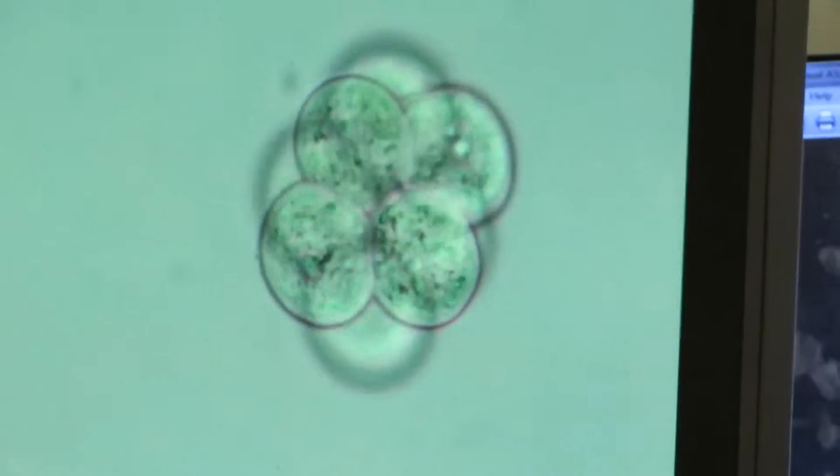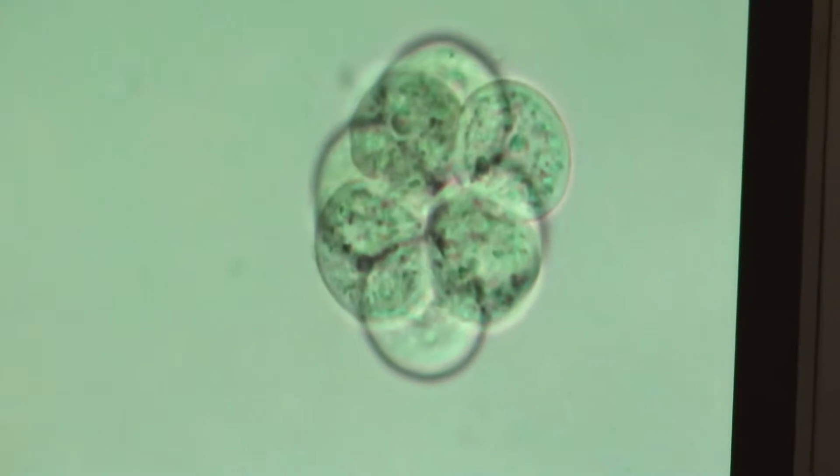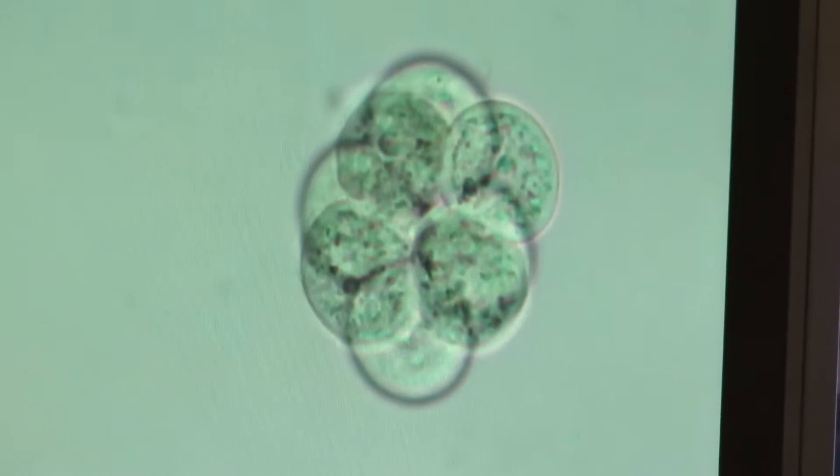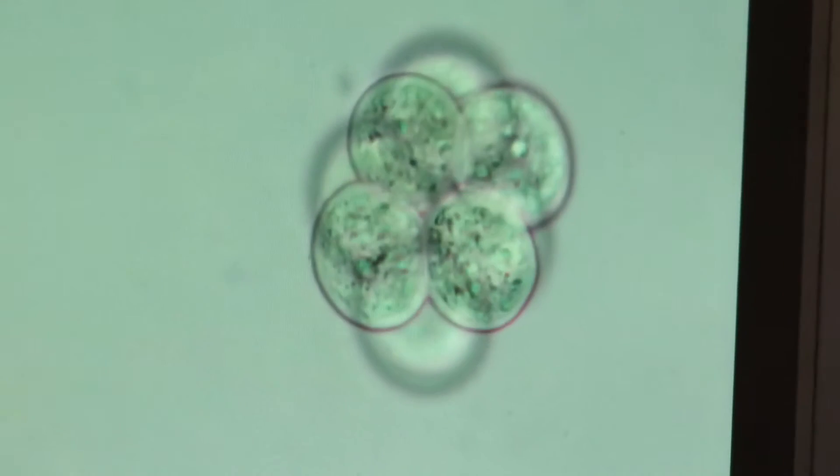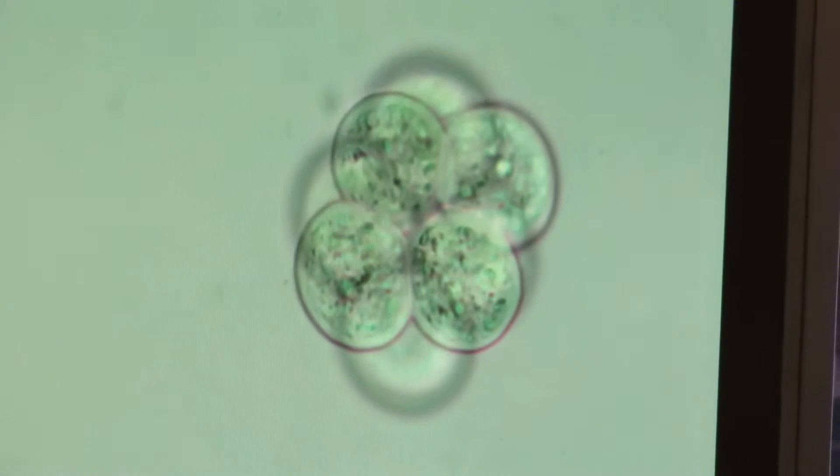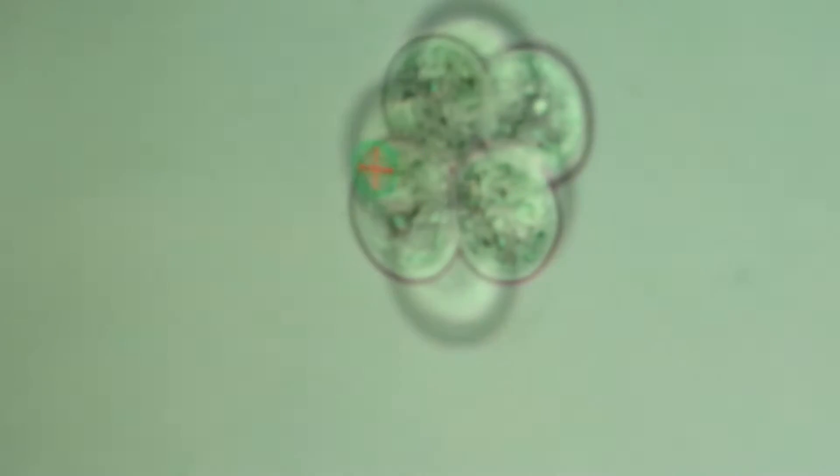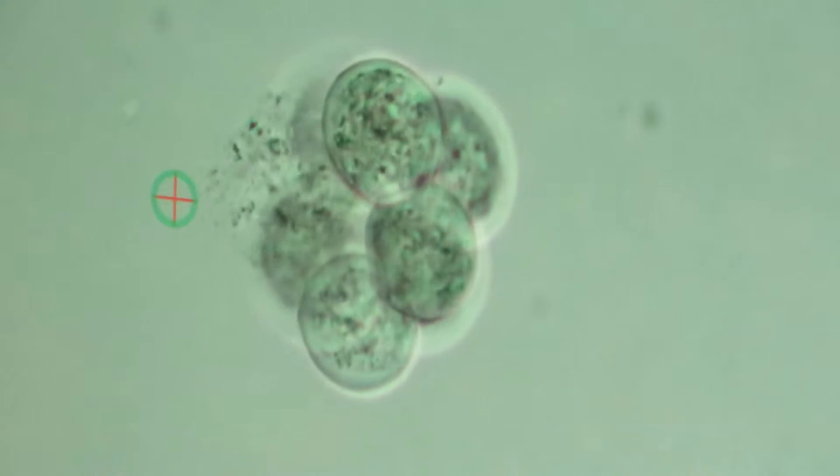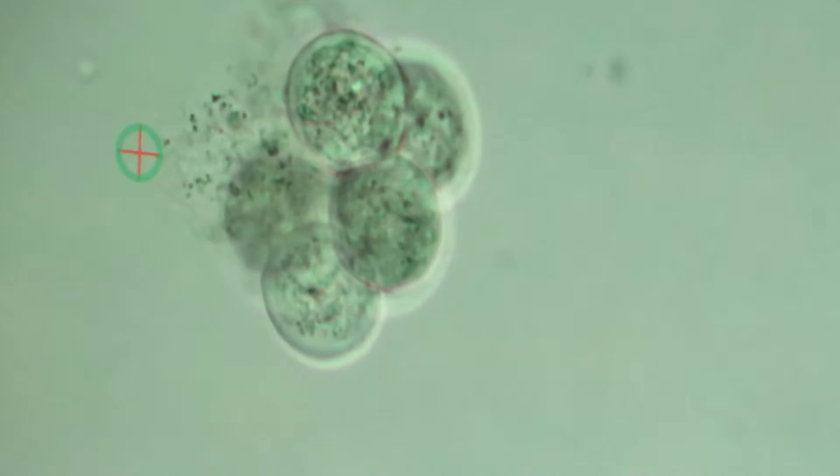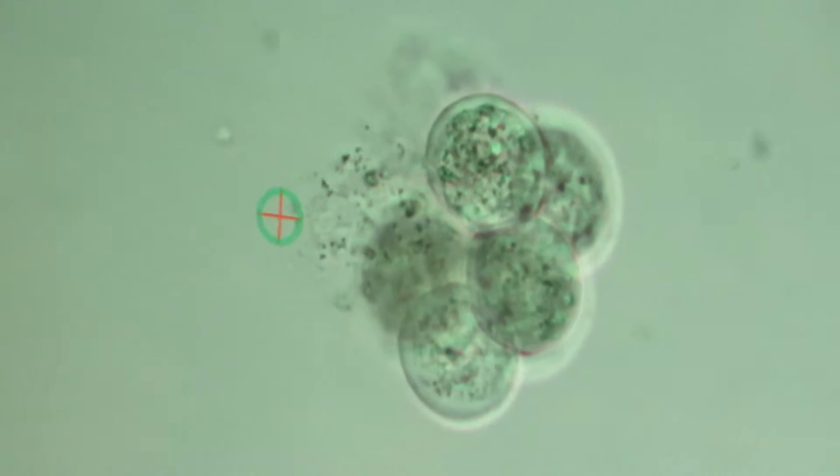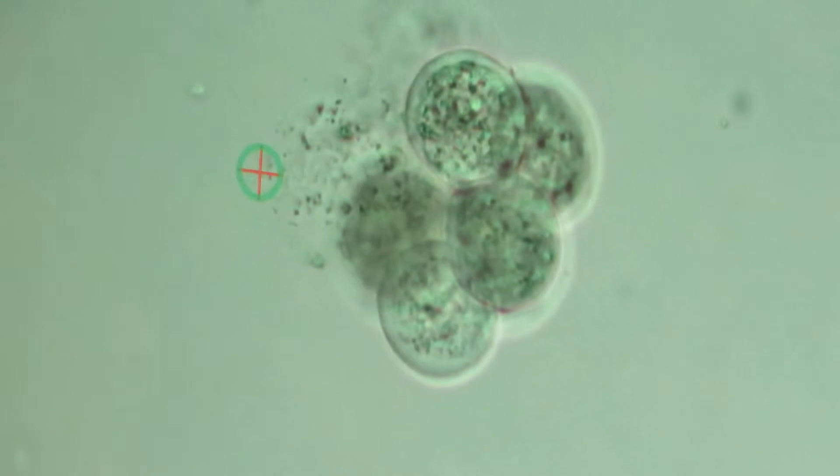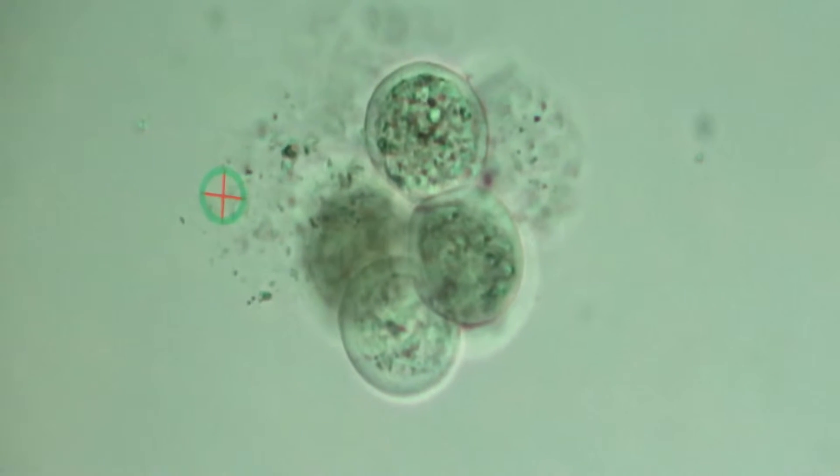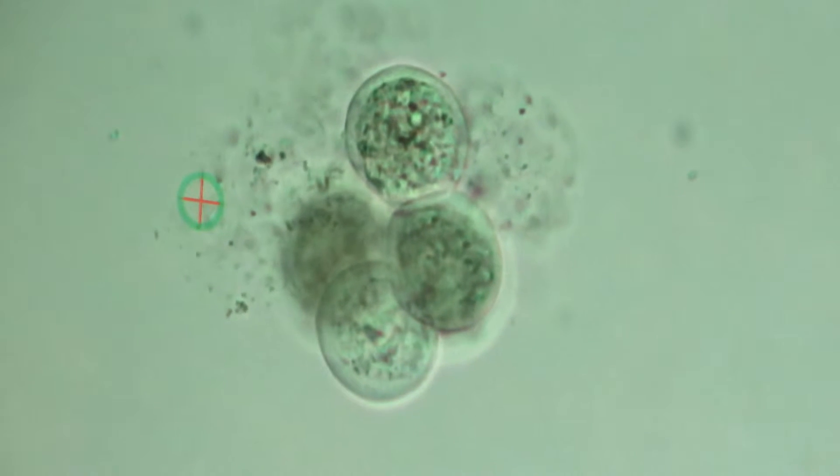Or you'll be dealing with single cells, so it'll be much easier to track the progress of the lysis. Once they start lysing, they all go one by one. Now they'll go one by one and you'll see the nucleus float out. Because the cytoplasm is a bit more granular and grainy, and more so in the mouse rather than humans, it will take a bit of time before you can see the nuclei clearly. So as soon as that granularity washes out, you'll see the nuclei more clearly.